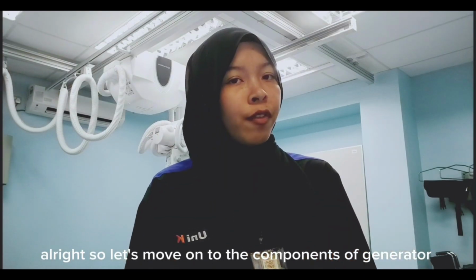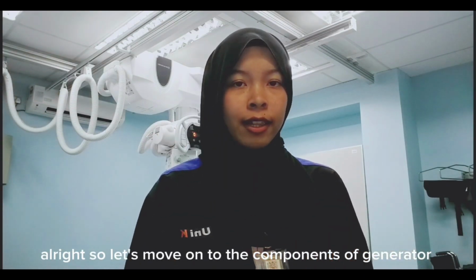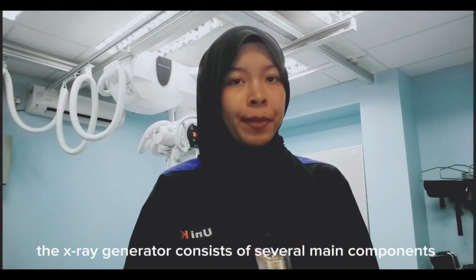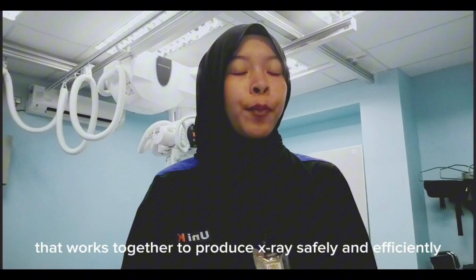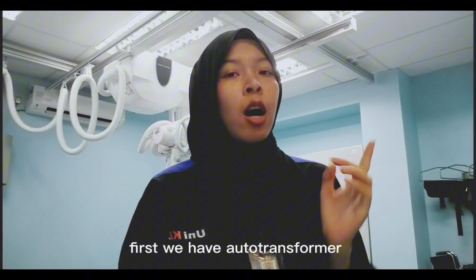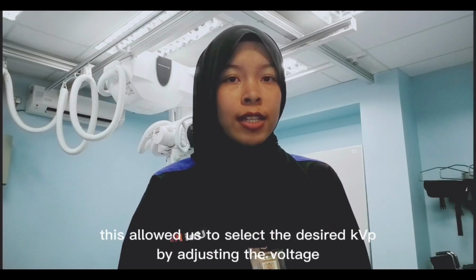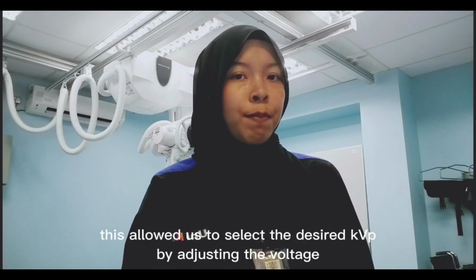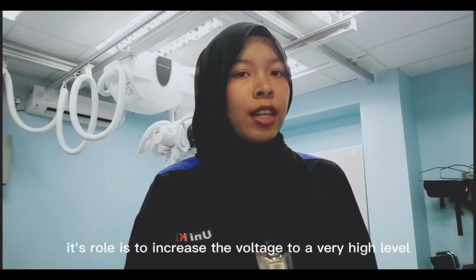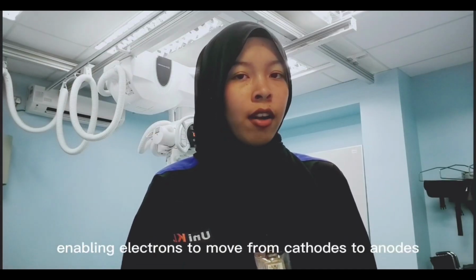Alright, so let's move on to the components of the generator. The X-ray generator consists of several main components that work together to produce X-rays safely and efficiently. First, we have the autotransformer. This allows us to select the desired kVp by adjusting the voltage. Next is the high voltage transformer. Its role is to increase the voltage to a very high level, enabling electrons to move from cathode to anode.